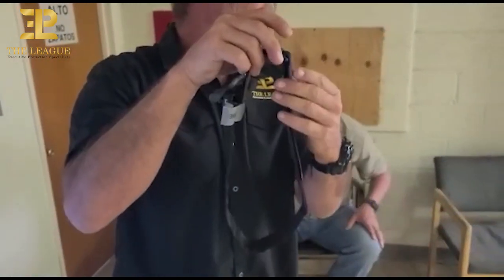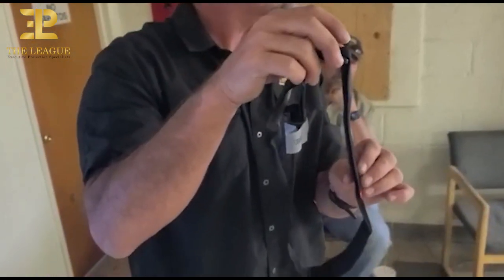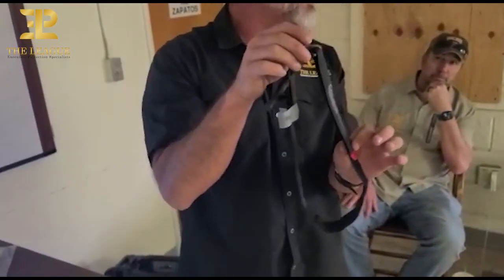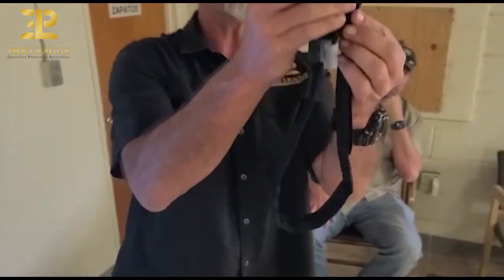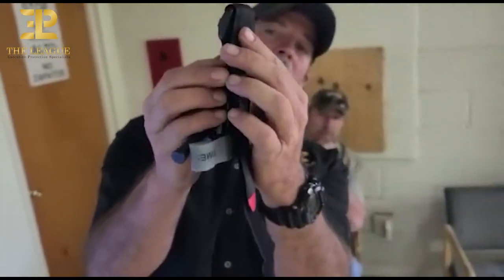Try to marry it up as best you can, not off to the side. Because a lot of tourniquet holsters, it wants to be perfect going in. Now this buckle right here — I don't want it down like this, I want it up.